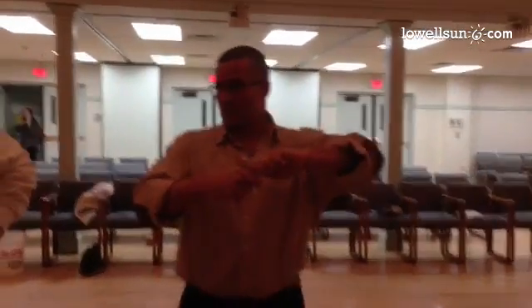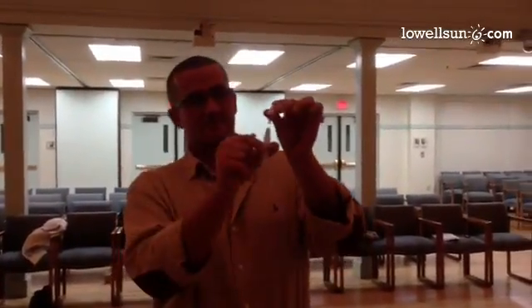So you're popping these little ends — that's what comes off. You're putting the nose piece on, and it's just half a spin. That's on already. And then you're grabbing this and just spinning it, and that's it.